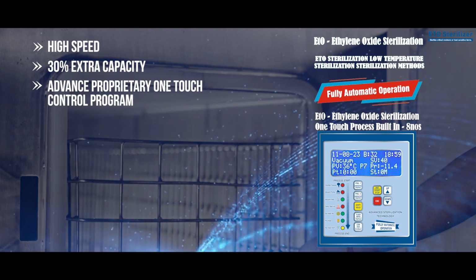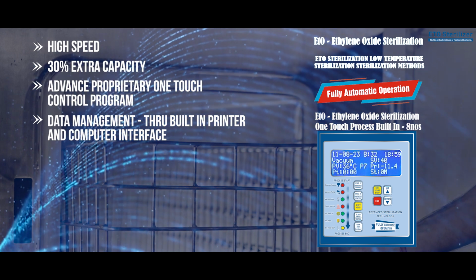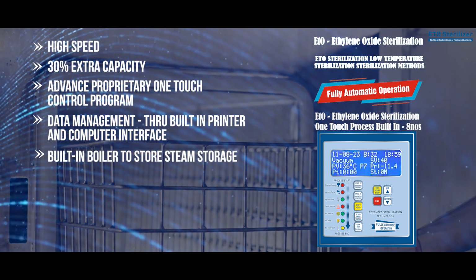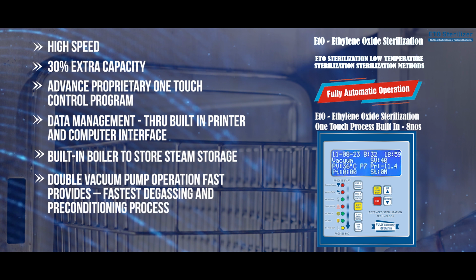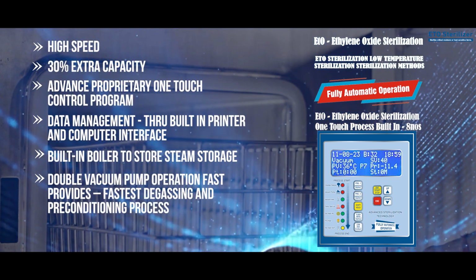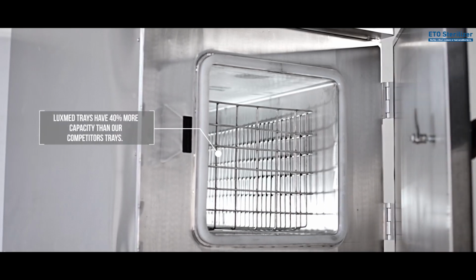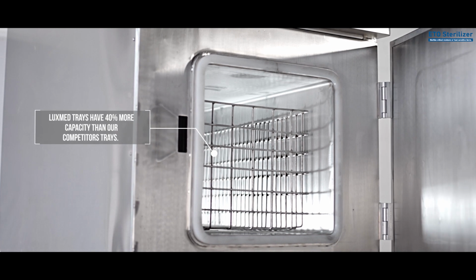Advanced proprietary one-touch control program. Data management through built-in printer and computer interface. Built-in boiler to store steam. Double vacuum pump operation provides the fastest degassing and preconditioning process. Safe manual operation. LuxMed trays have 40% more capacity than our competitors' trays.